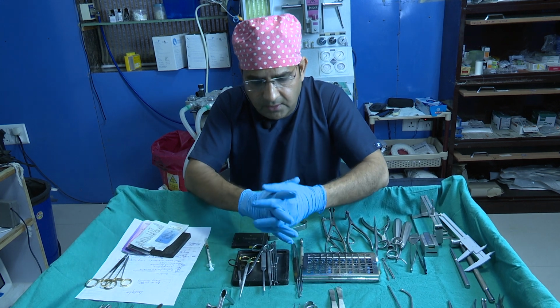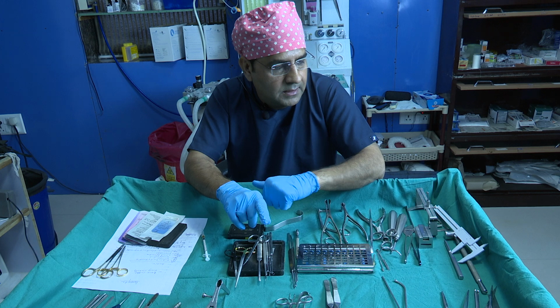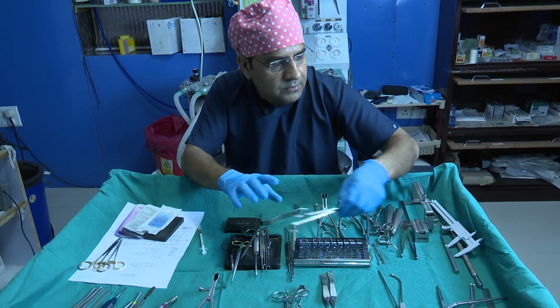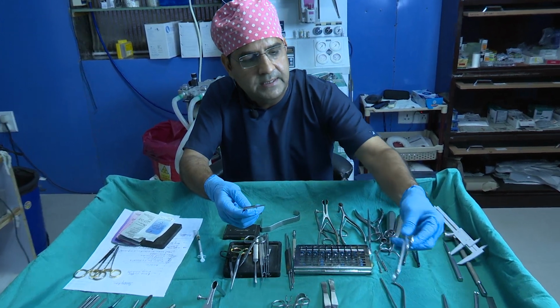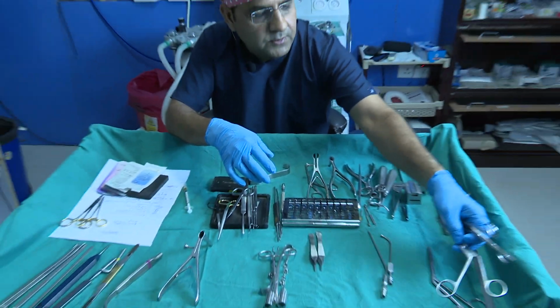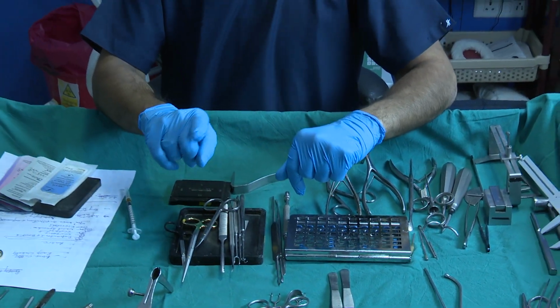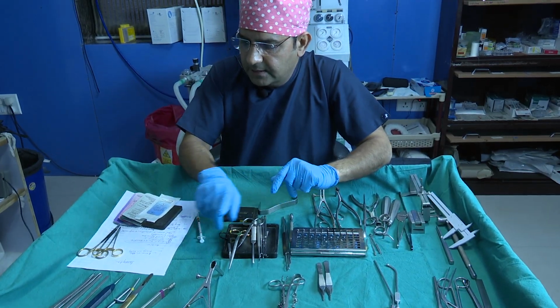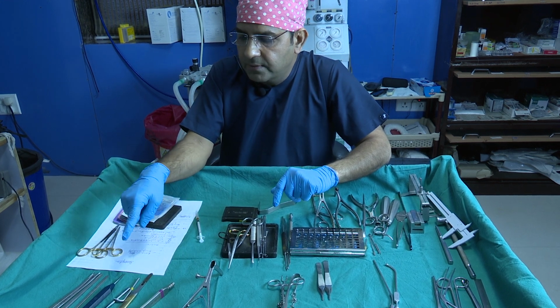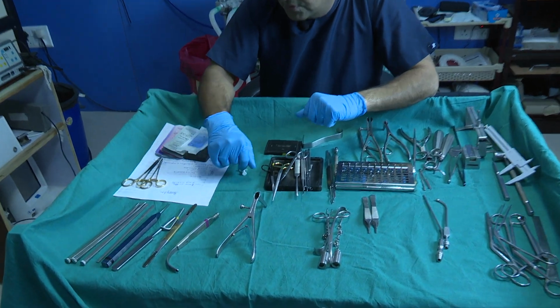And now after septoplasty, I think everyone has used these instruments. This is the turbinate scissor and nasal speculum forceps, and this is the Luc forceps. These are the routine instruments. Then after the septum exposure, these instruments are usually used for the bony pyramid modifications, for the osteotomies.